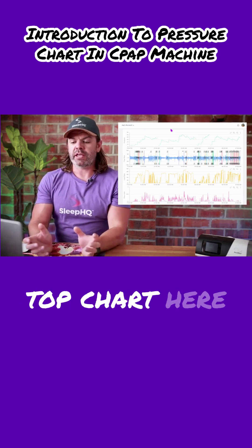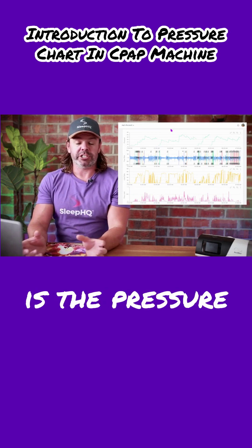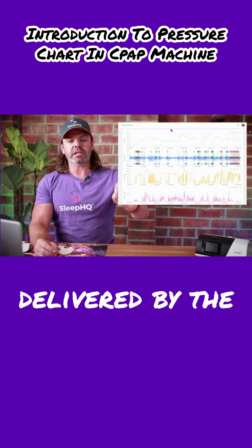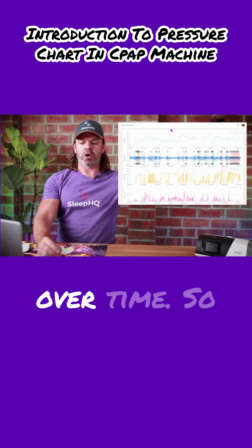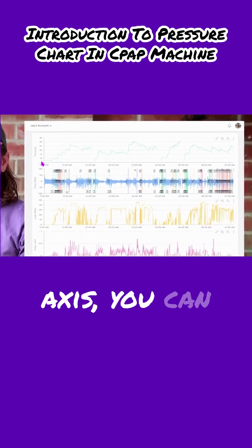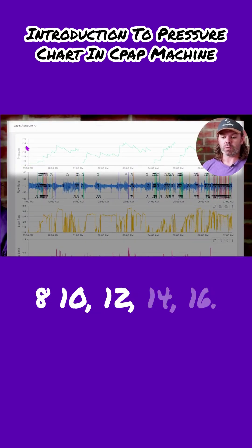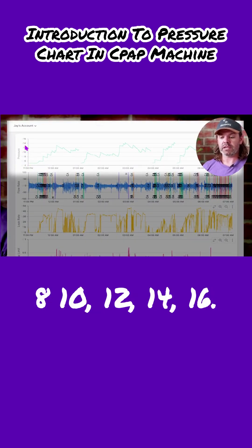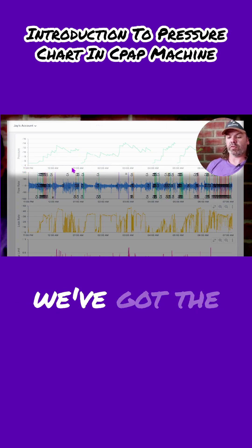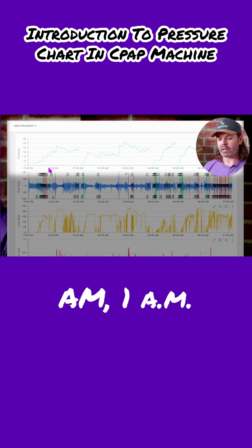The top chart here is the pressure chart — the pressure delivered by the CPAP machine over time. On the y-axis, you can see the pressure levels: 8, 10, 12, 14, 16. And on the x-axis, we've got the time: 11 p.m., 12 a.m., 1 a.m.